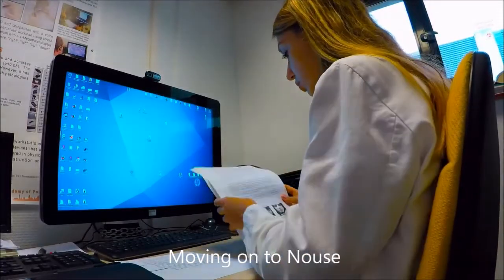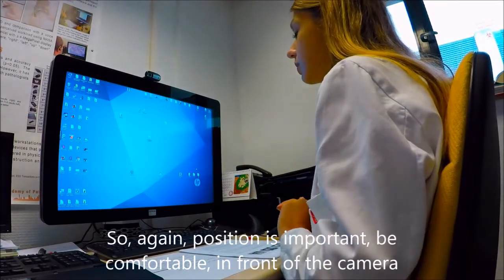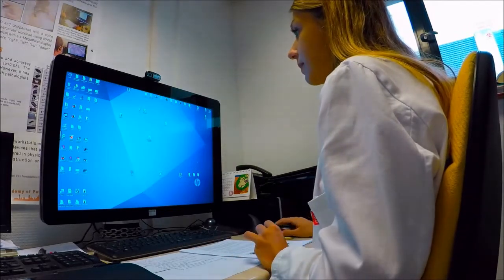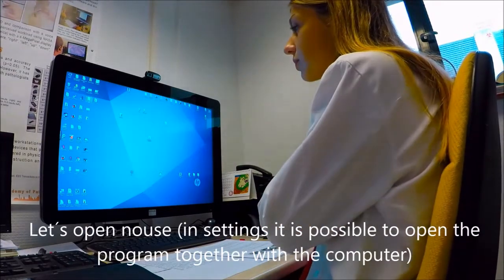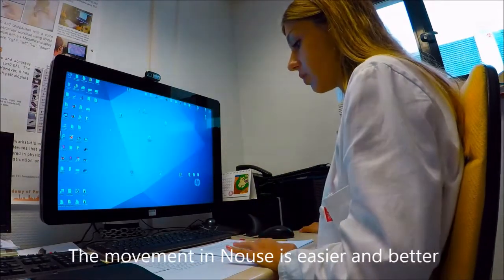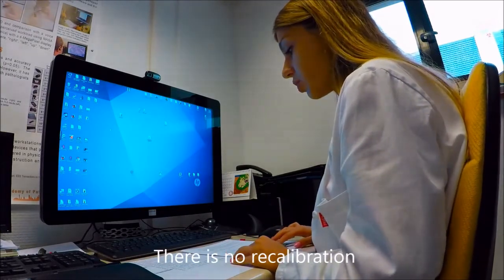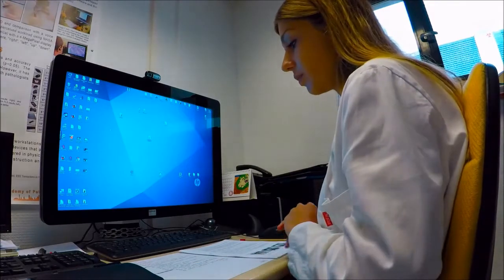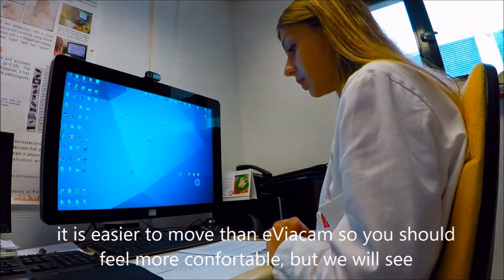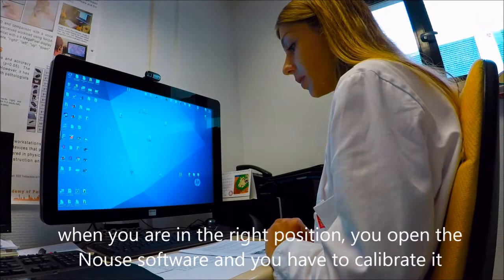Moving on to Nouse. So again, position is important. Be comfortable in front of the camera. Let's open Nouse. In settings, it is possible to open the program together with the computer. The movement in Nouse is easier and better. There is no recalibration and it's easier to move than with eViacam, so you should feel more comfortable. But we will see.